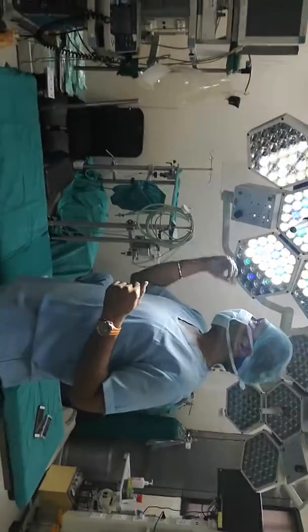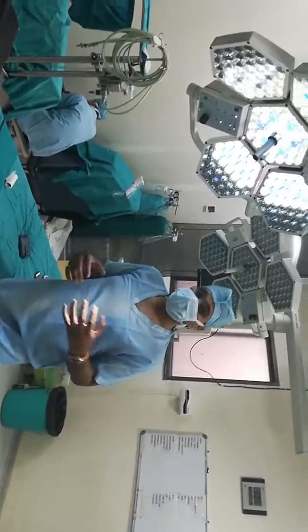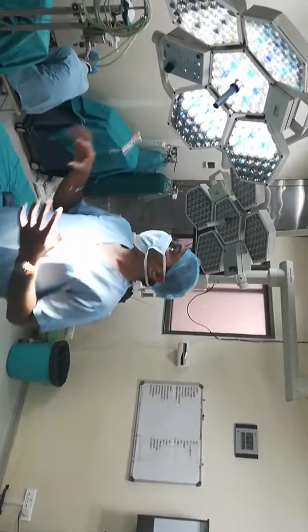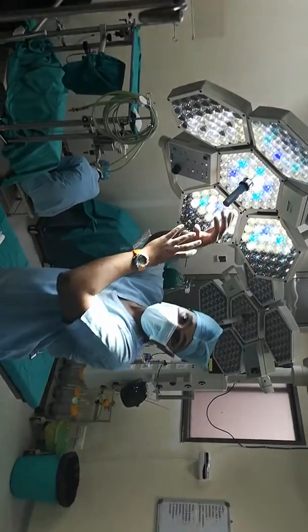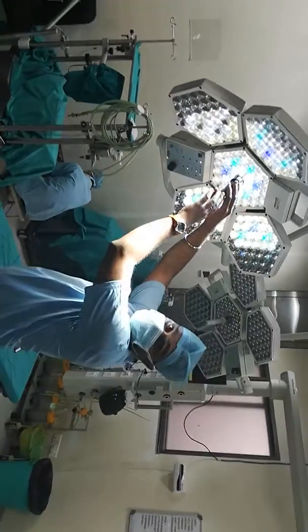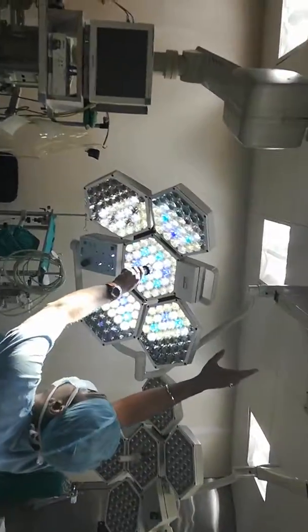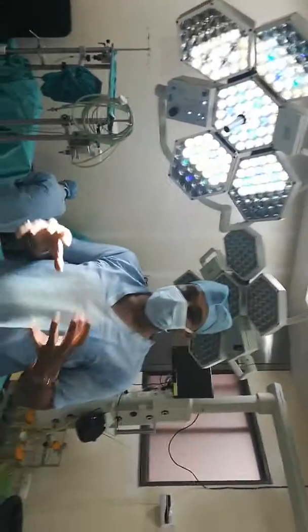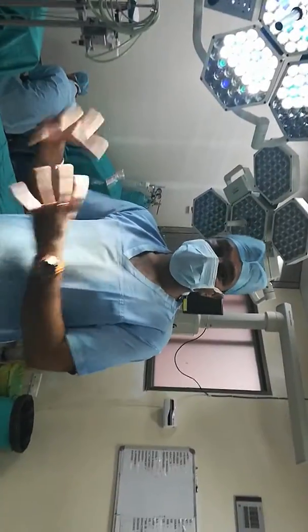There is also a mechanism for attaching a camera over here. If you want to record a surgery or see precisely what the surgeon is doing, you can attach a camera here. All the camera and video signals captured from here go through an upper channel with a pattern-like structure, and then the information goes to a data center — like a hard disk — where it is stored.